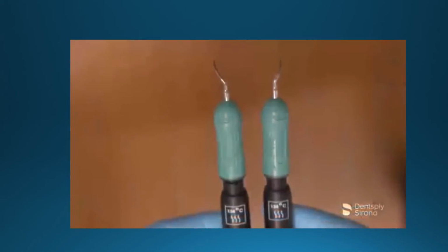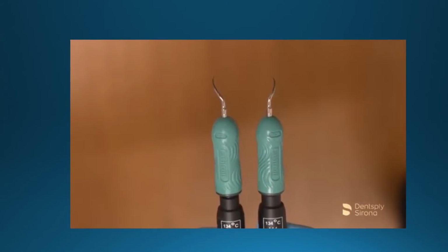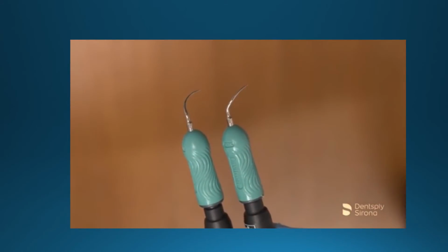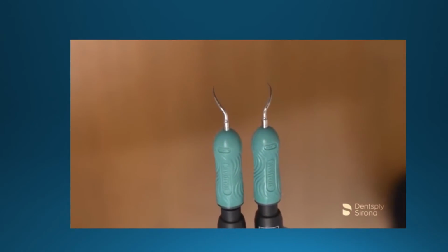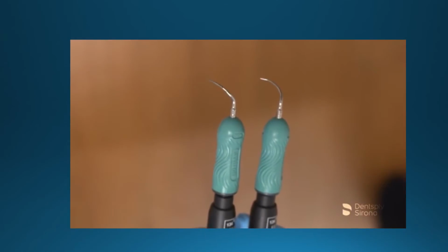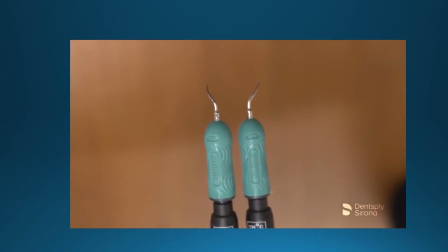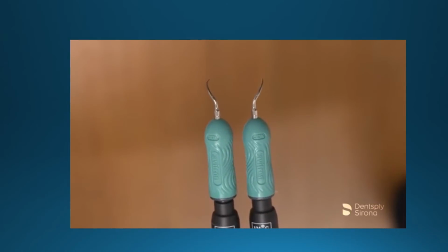The clinician must be able to identify the inserts by recognition of the shank and direction of the curvature of the tip. Memorizing colors or trying to read the stacks can be challenging and prove confusing for the clinician. Adapting the curved insert properly requires a fundamental knowledge of the tooth's anatomy and proper placement on the appropriate tooth surface. In order to identify which insert one is holding, it is recommended to begin by holding the inserts parallel to the floor with the points facing down or perpendicular to the floor with the points facing away from the clinician.